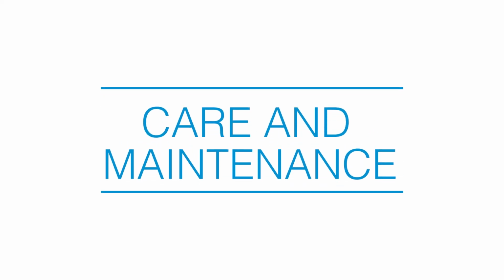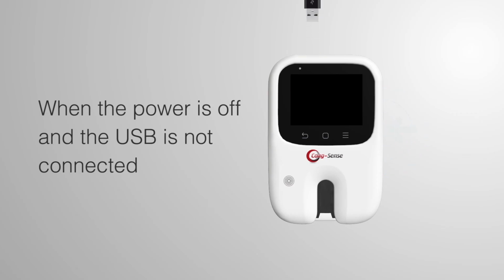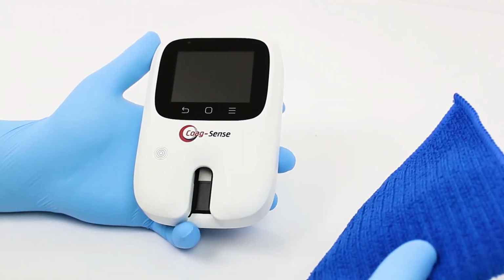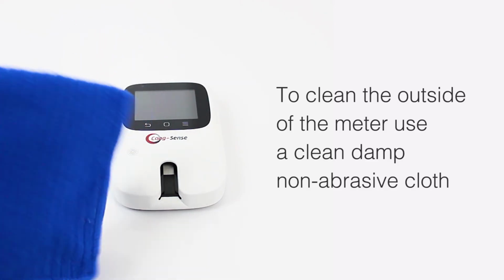Care and maintenance. No maintenance is required other than routine cleaning and/or disinfecting. When the power is off and the USB cable is not connected, the meter housing can be cleaned and disinfected. To clean the outside of the meter, use a clean, damp, non-abrasive cloth.